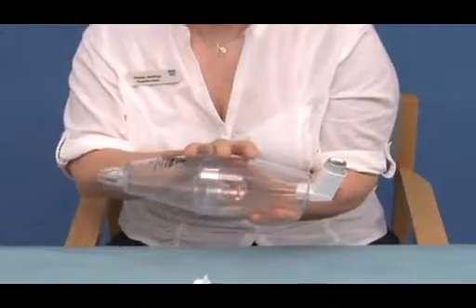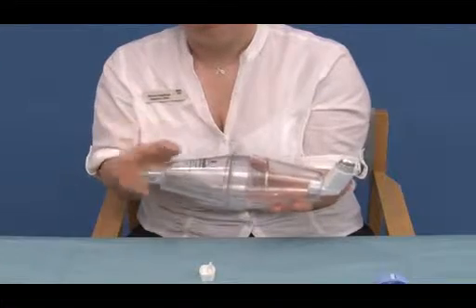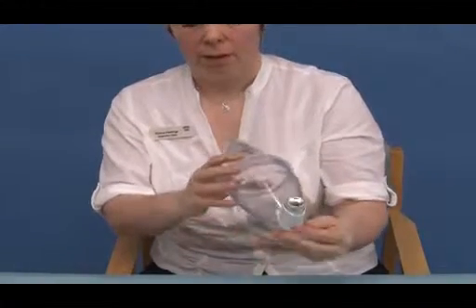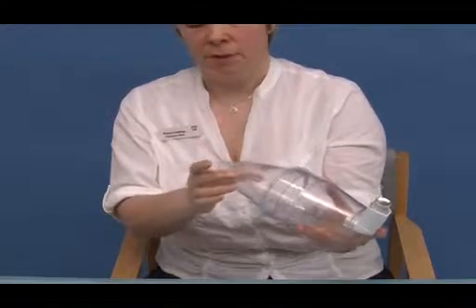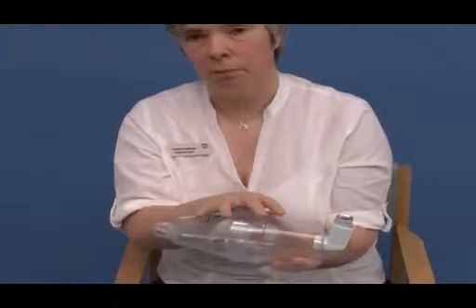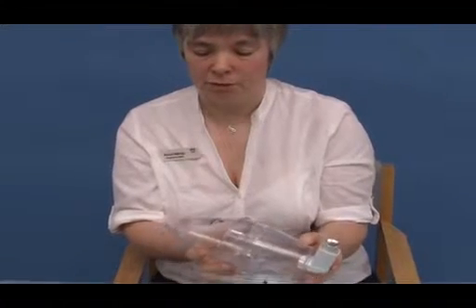This device does not have whistling sounds, but when patients do breathe in and out, there is a valve that moves back and forward, so patients are aware if they are able to use the device. Again, they would take one puff, breathe in, hold their breath if possible for 10 seconds. But again, like the smaller device, patients can be taught to use tidal breathing with the Volumatic. I'll now demonstrate how to use a metered dose inhaler with a Volumatic spacer device.